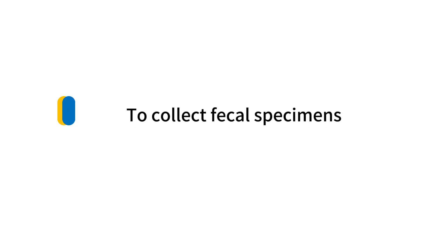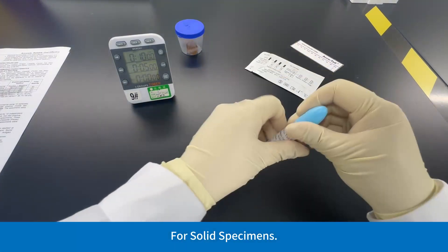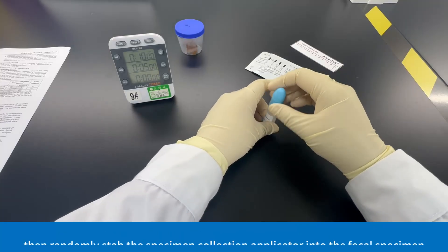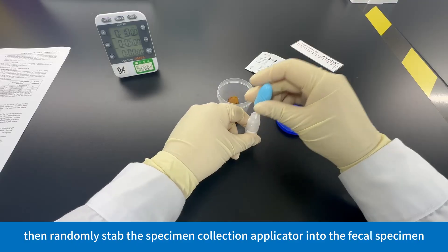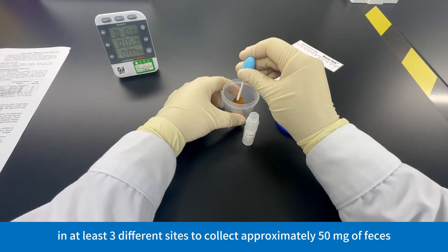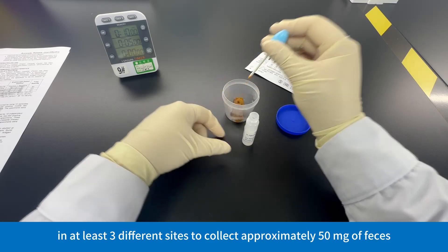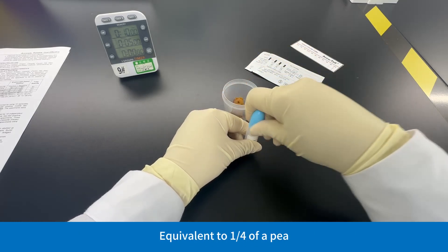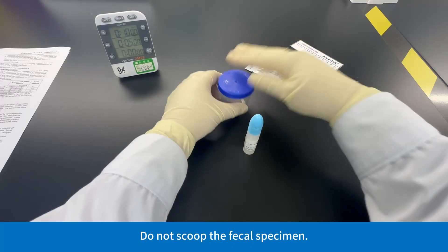To collect fecal specimens for solid specimens, unscrew the cap of the specimen collection tube, then randomly stab the specimen collection applicator into the fecal specimen in at least three different sites to collect approximately 50 milligrams of feces, equivalent to one quarter of a pea. Do not scoop the fecal specimen.